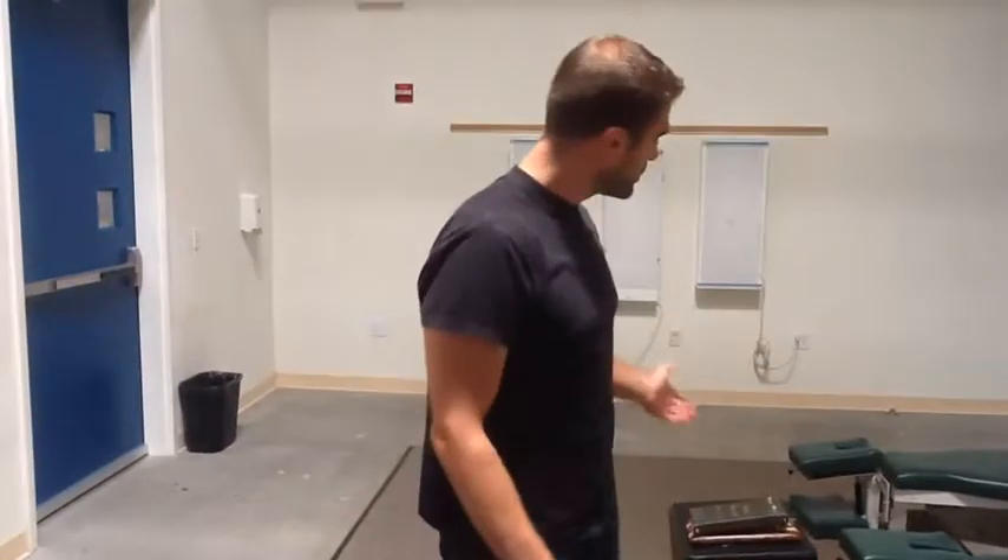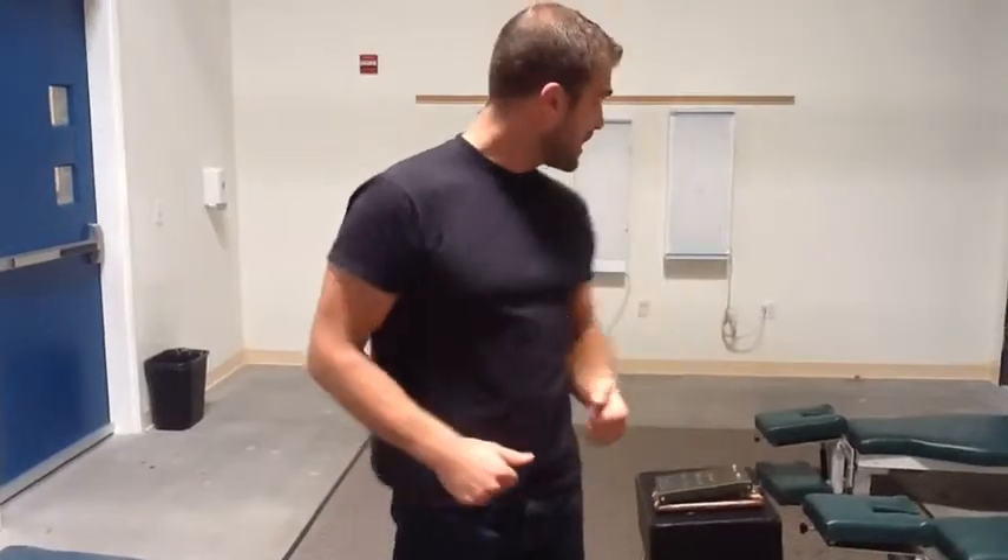So that's just an example of how to use the Choate Speeder Board. I hope this is helpful. There are a lot of ways you can use this, but the greatest part about it is it really does prepare your body for chiropractic work. I hope you can purchase a speeder board and begin to practice at home. We'd like to see more and more students graduate as proficient and trained doctors of chiropractic by the time they finish school. Thank you.